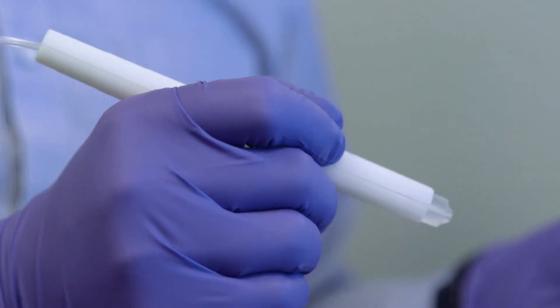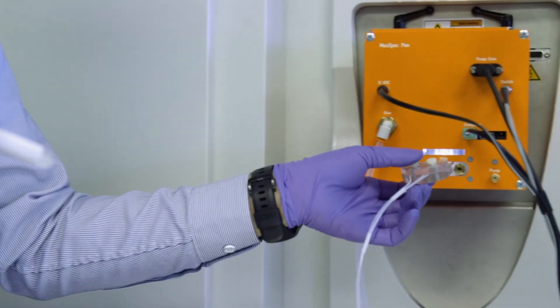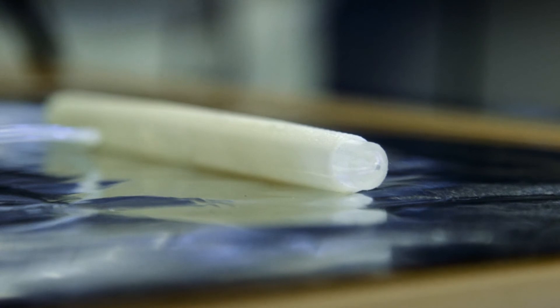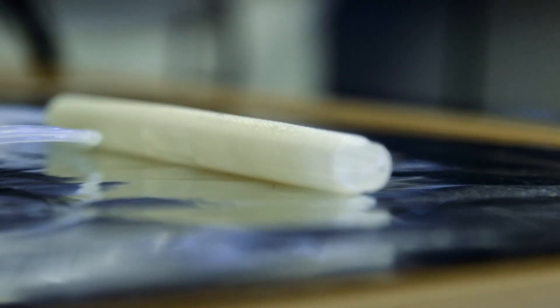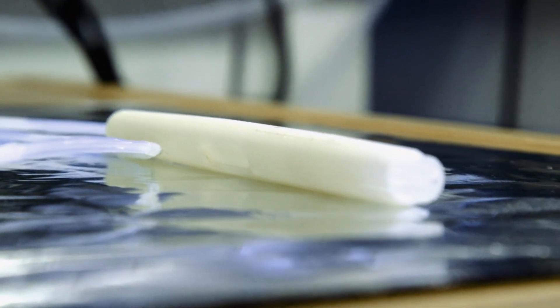This is a handheld device that a surgeon would hold to do the analysis, and it's disposable. We engineered it in a way that is pretty cheap — it's made of common plastics like PDMS and PTFE. We 3D printed it, so it's pretty straightforward to make. That handheld probe and the tubing are envisioned as disposable consumables that would be used and then replaced for different surgeries.